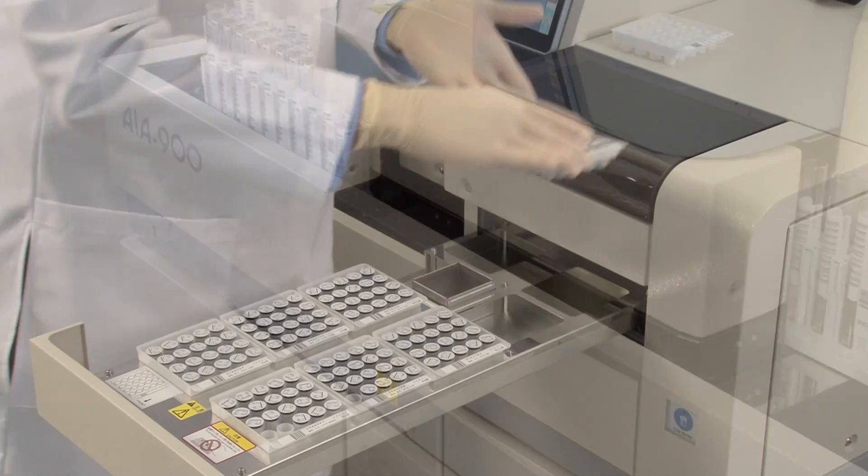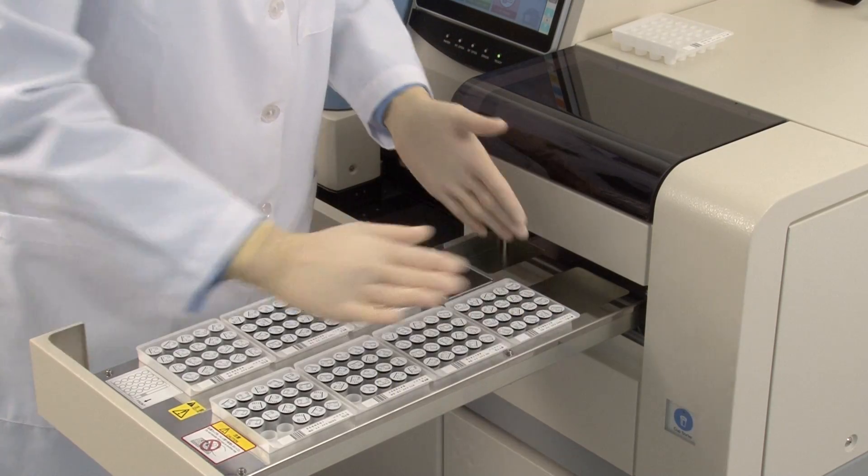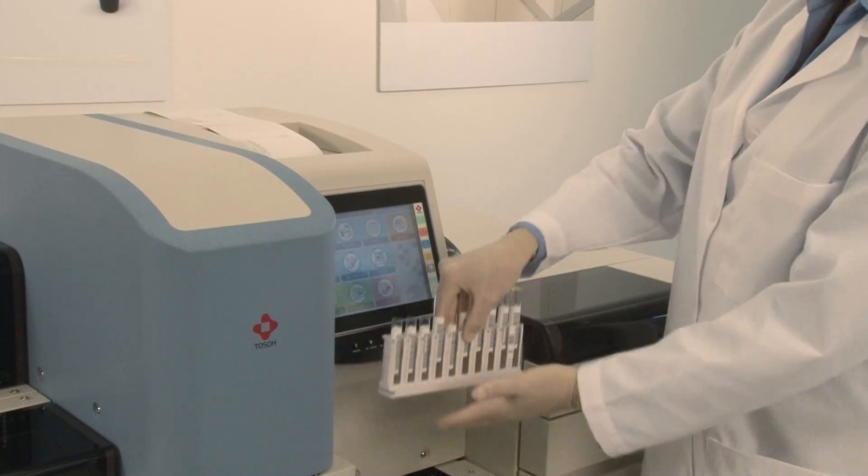It is TOSO's goal to enhance immunoassay testing while adding functionality to improve workflow and reduce labor time.